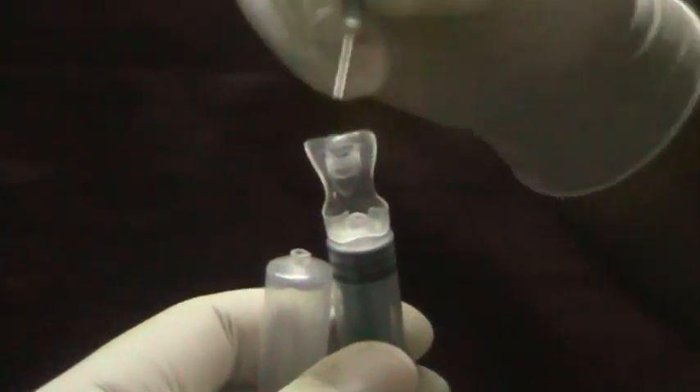the hub is broken and is left inside the needle. Since the broken hub is inside the needle, it also cannot be used again. So both the syringe and the needle are well disposed.